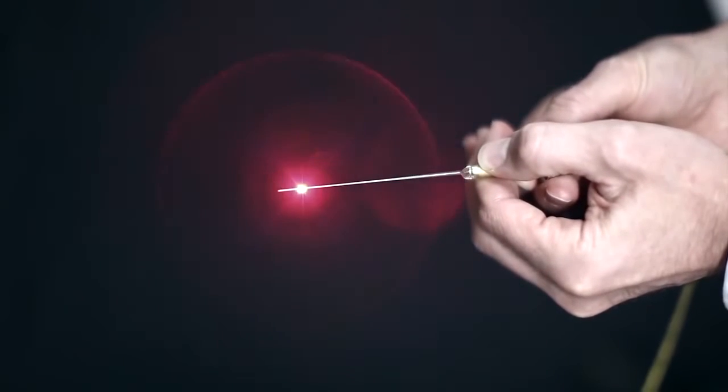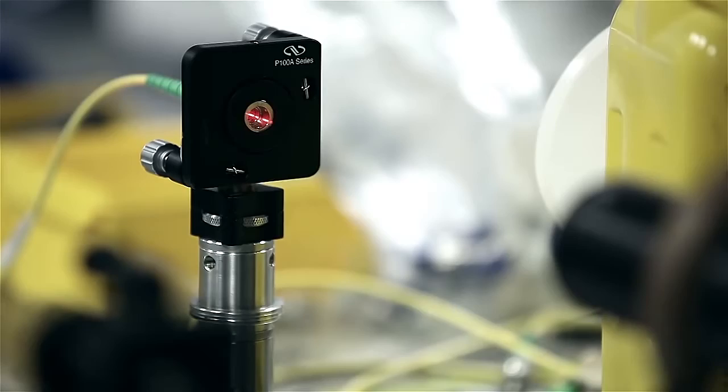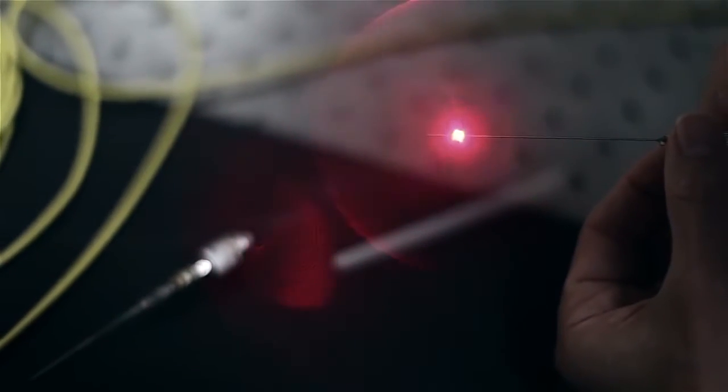We started this project back in 2005 where we had the idea of measuring an optical property with a needle. But all the time we were doing it, we were thinking we really wanted to be developing an imaging device. We want to be able to put the needle in tissue and actually capture a three-dimensional image.